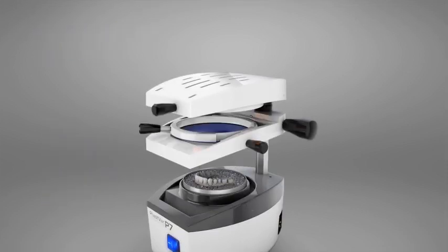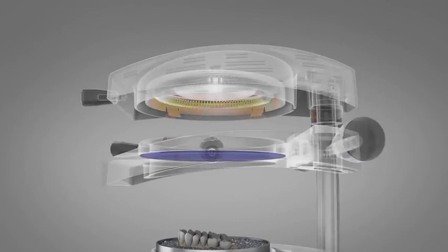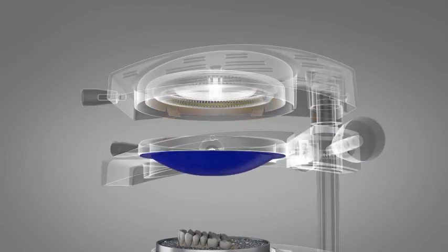It avoids sheets distortion, increases the airflow and facilitates the cast removal, avoiding cast breaking.